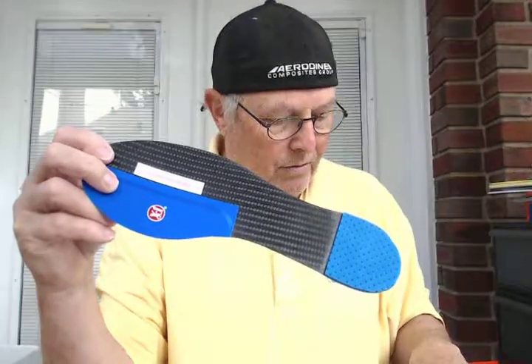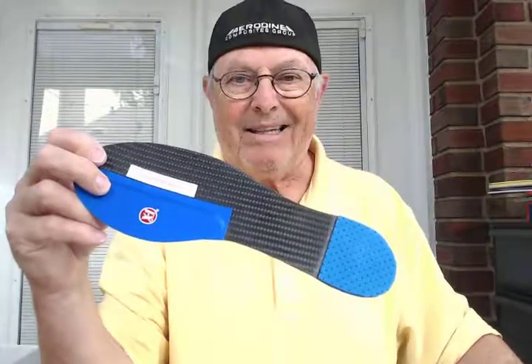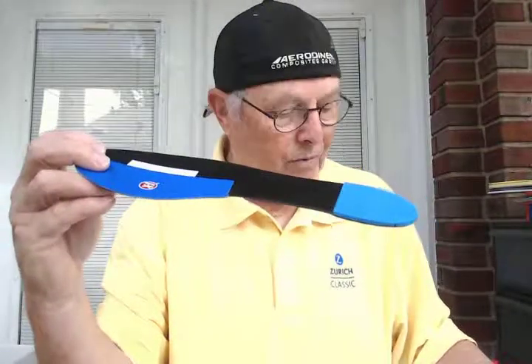We had to back order — he got the Lite model. He's going to see which one he likes better, but I guarantee you he's going to like the one that's more rigid, especially if he's trying to avoid a Great Toe Fusion.